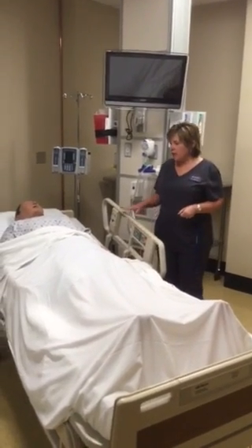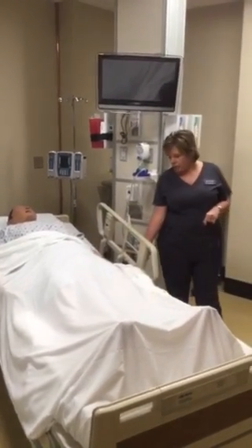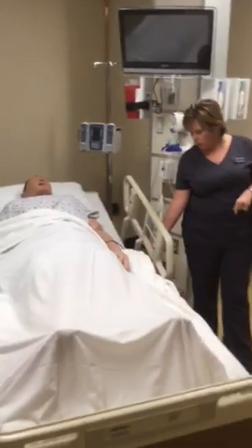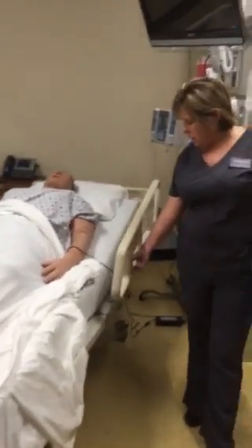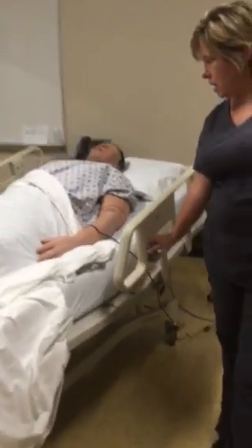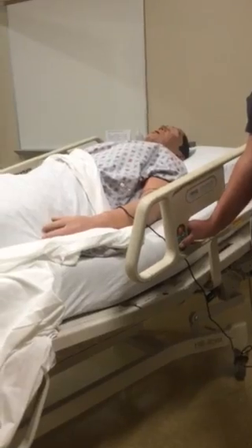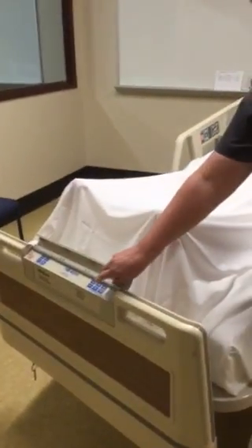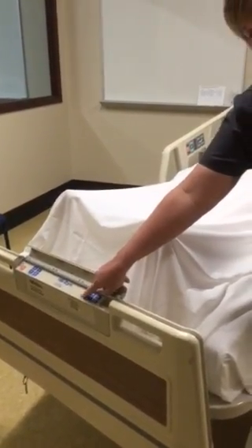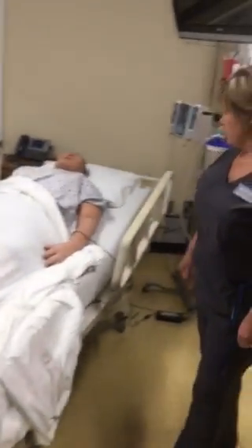The hospital beds all work similarly, meaning that the head and the foot rise and fall are on the outside of that handle. Some of your beds will be unlocked to raise and lower here, or you may need to go to the panel at the foot of the bed where you can do bed high and bed low if the rail controls do not work.